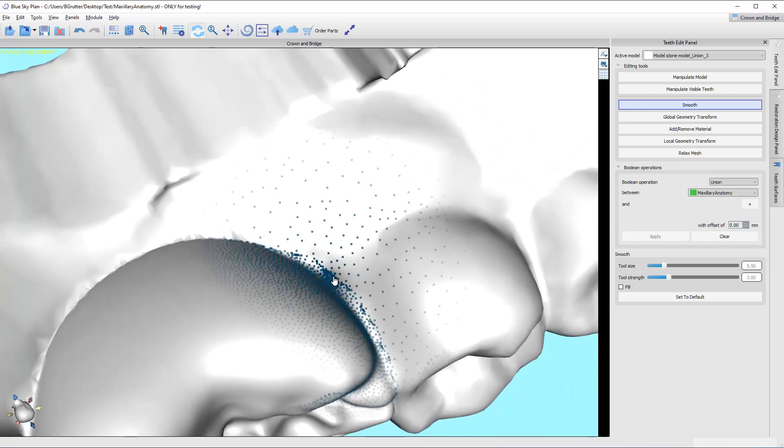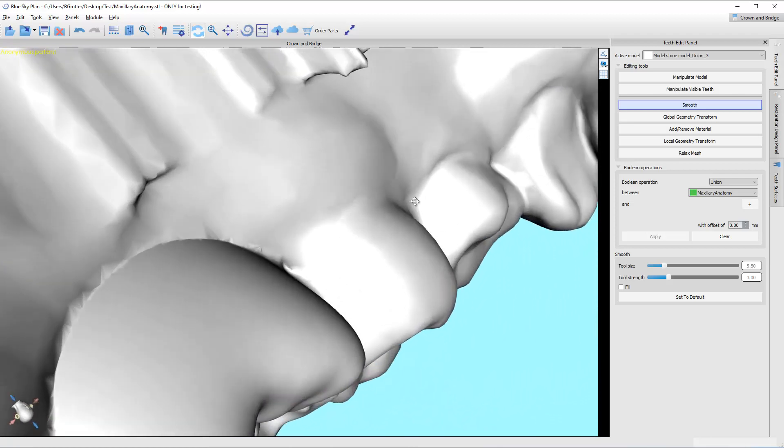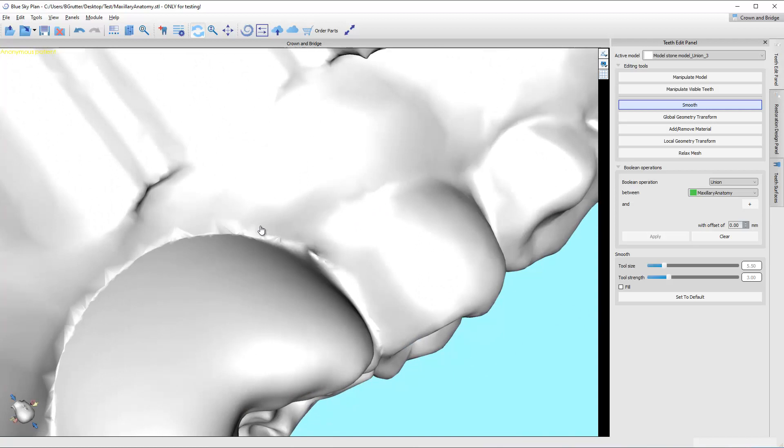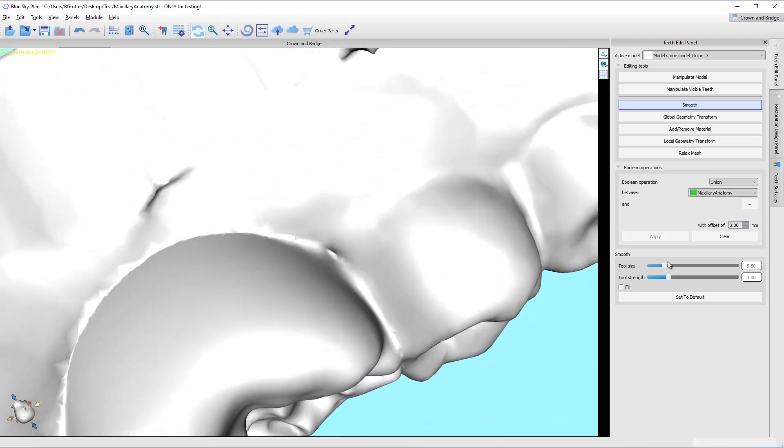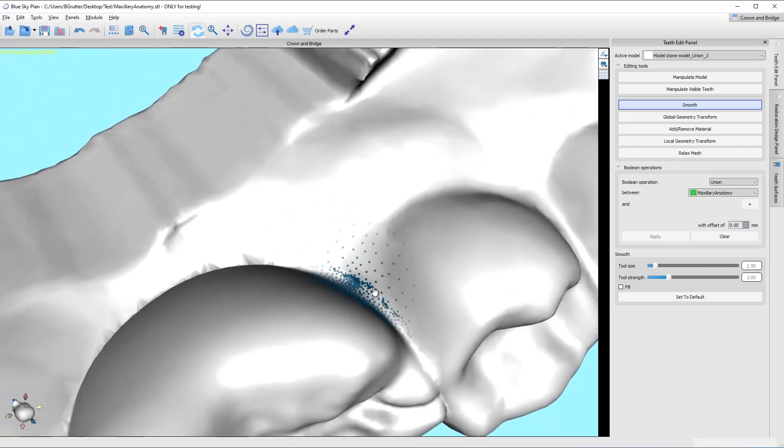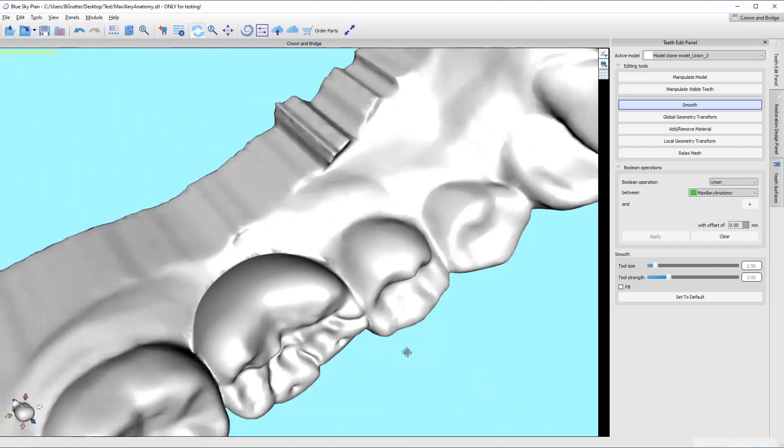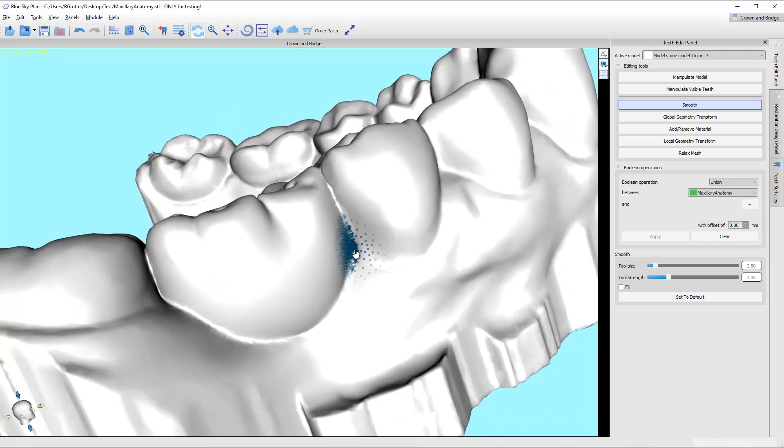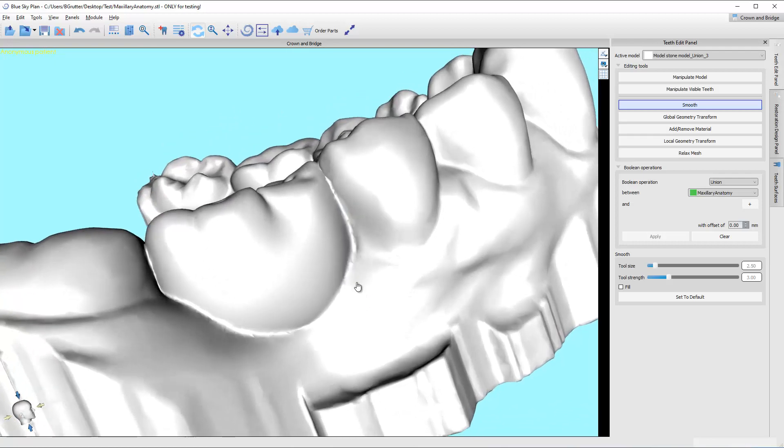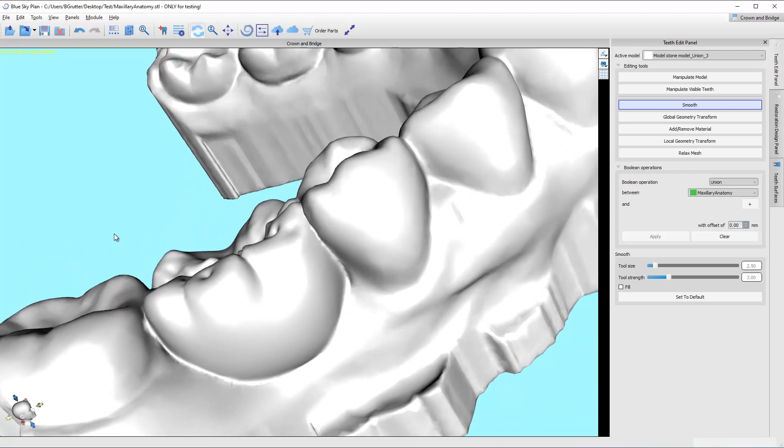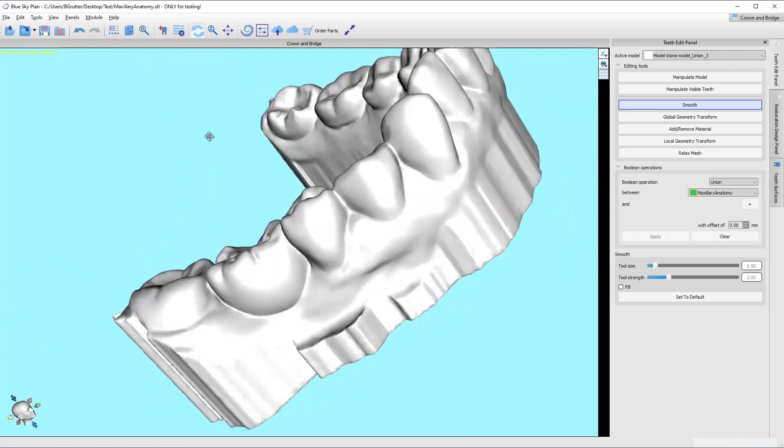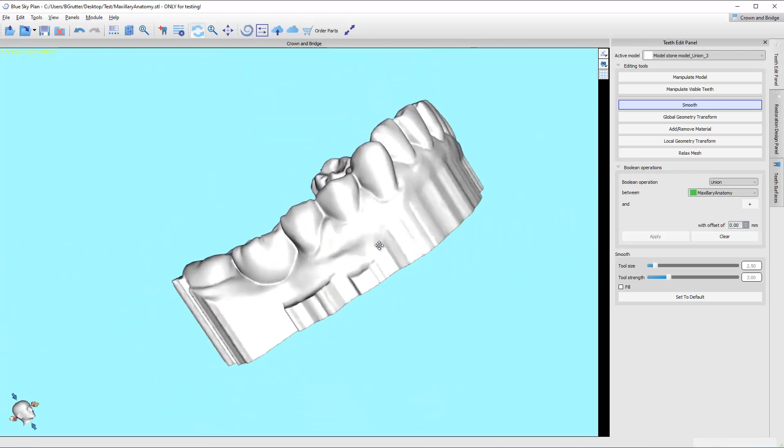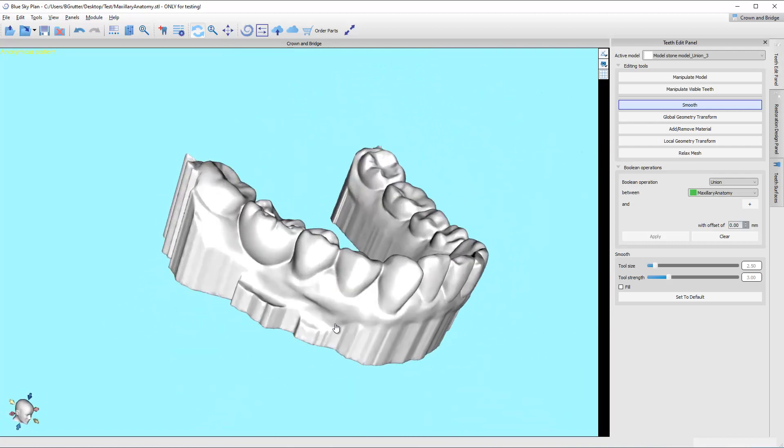Now, technically, the model editing module has the ability for me if I needed to. If you had an issue, you can export this model and then re-import it and then use the model editing module basically to delete this area and then to repair it so that there's no chance that it falls in. I think this is going to work fine for us. Here's our model. We can now use this in ortho.